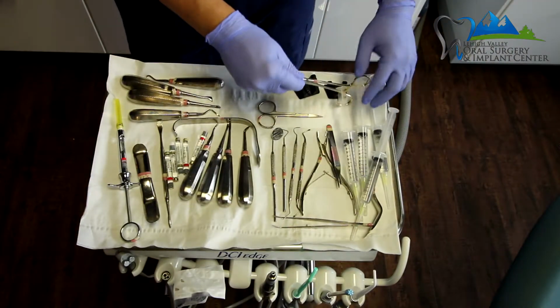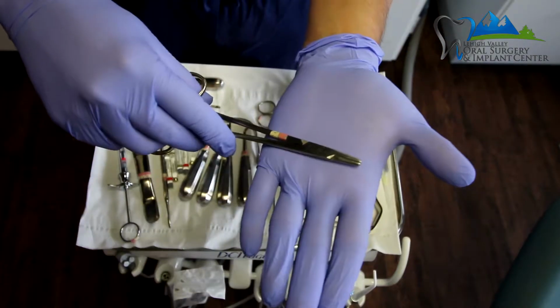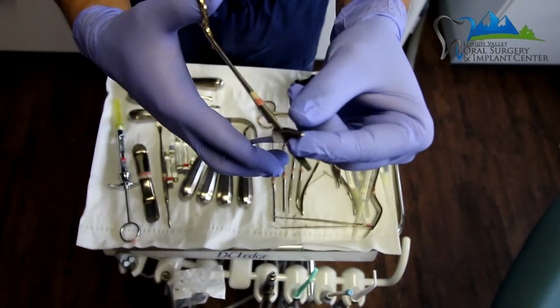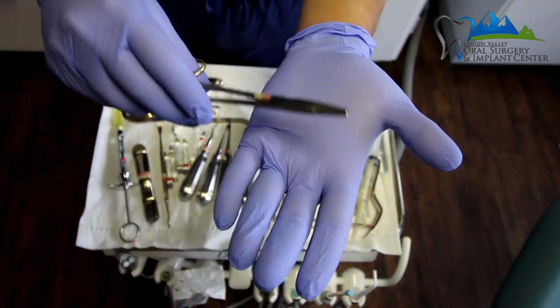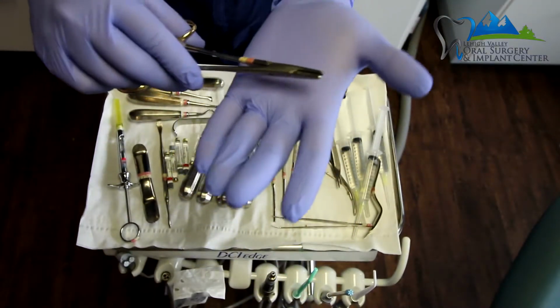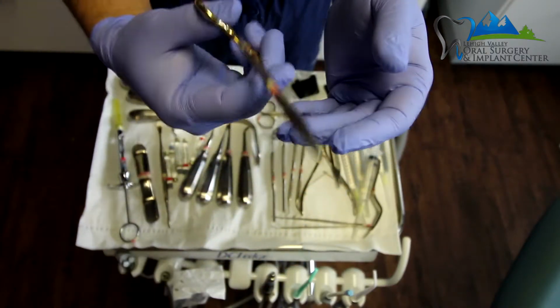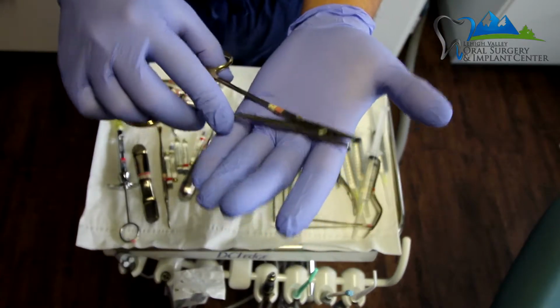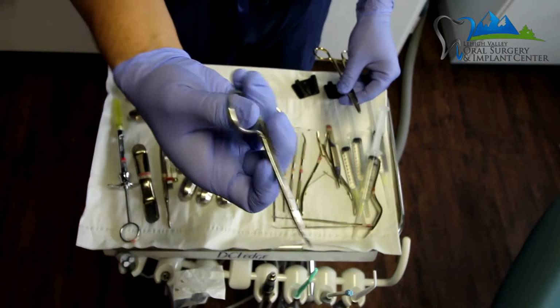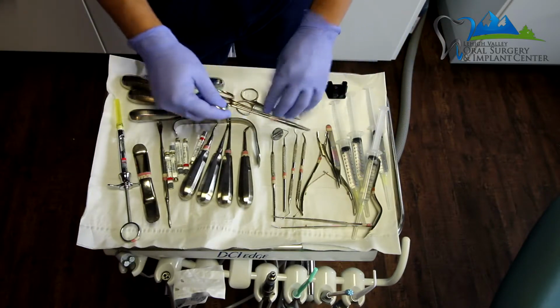Then we have the suturing, the needle holder. So this is a needle holder, and I like these fat little serrated type of surfaces to them. It's very important to note that a needle holder is very different than some other types of things that kind of look similar to it. So a needle holder is specifically designed for suturing. And then you have scissors to cut the sutures as needed. Okay? So that is the basic setup of the tray.